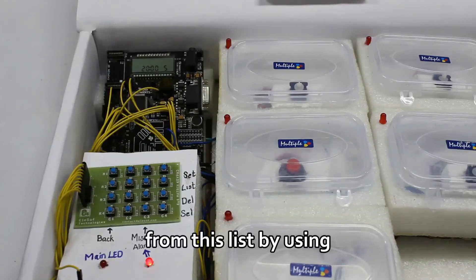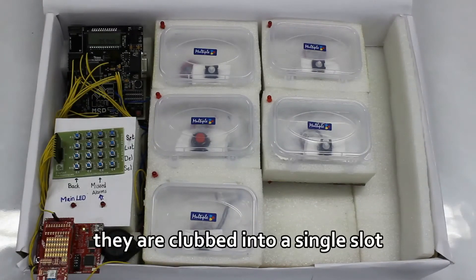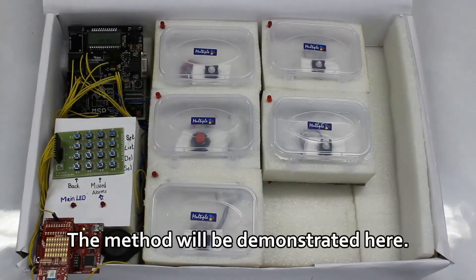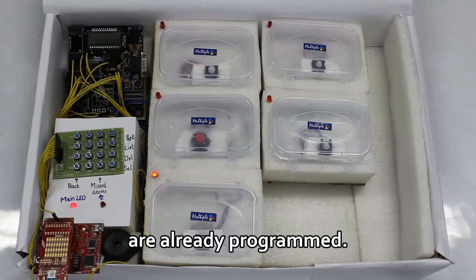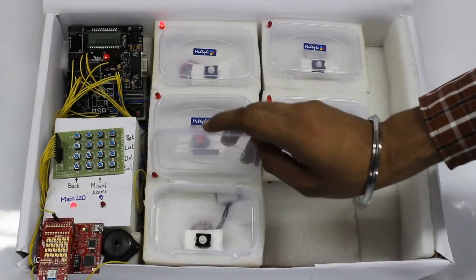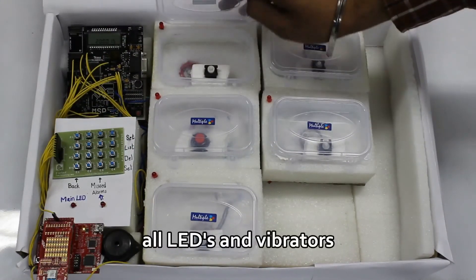The alarm can then be deleted from this list by using the delete button. When there are more alarms with close times, they are grouped into a single slot of one hour, and the person is notified only once of these medications to be taken. Two alarms — one at 20:00 hours at compartment 3 and one at 20:30 hours at compartment 1 — are already programmed. After the first medication is taken, the main LED will stay on and the LED of the new compartment will light up. After taking that medication, all LEDs and vibrators go off.